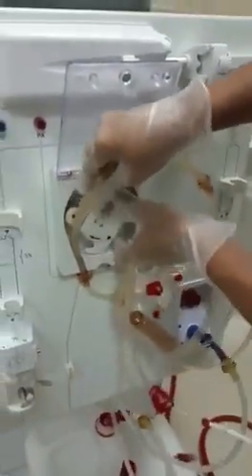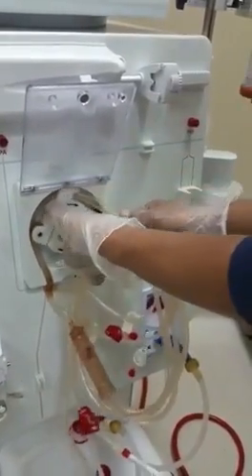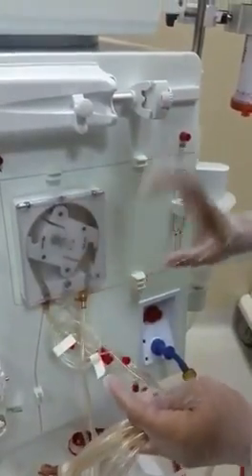So we will start from the left, gently rotating the rotor clockwise until both feet are well seated, then close.